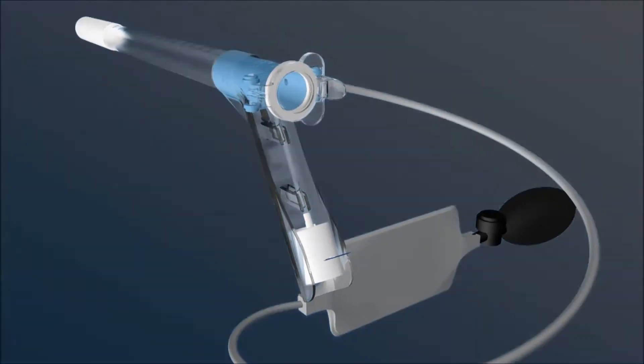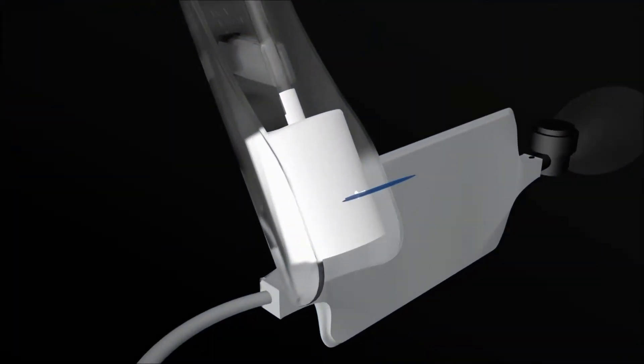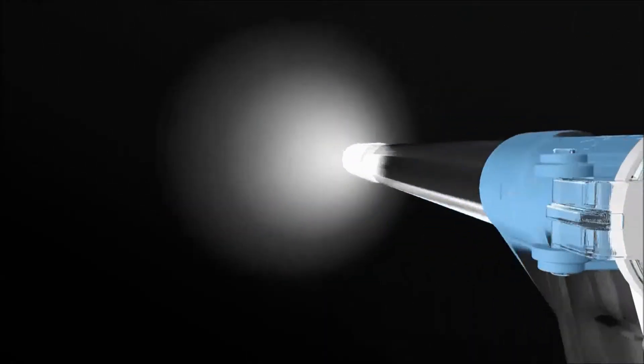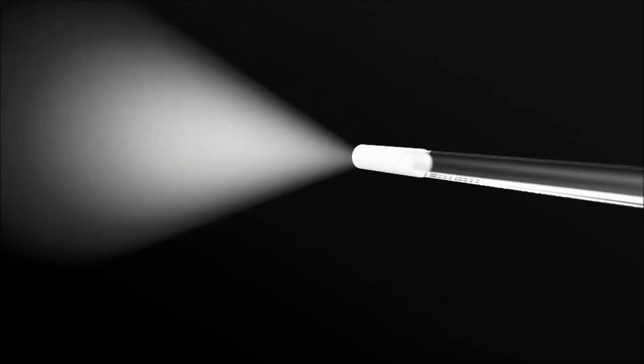The lens door provides magnification and an airtight seal, enhancing vision and making it possible to inflate the bowel using the integrated insufflator.